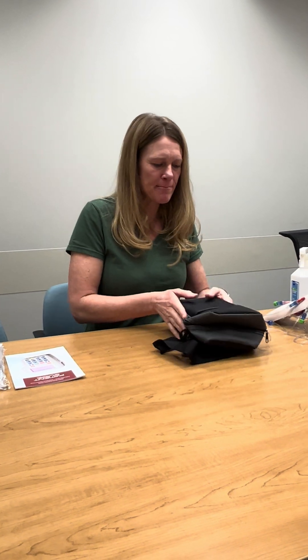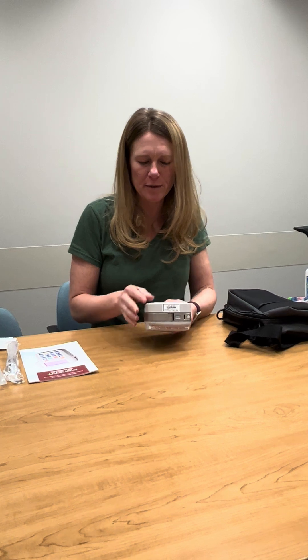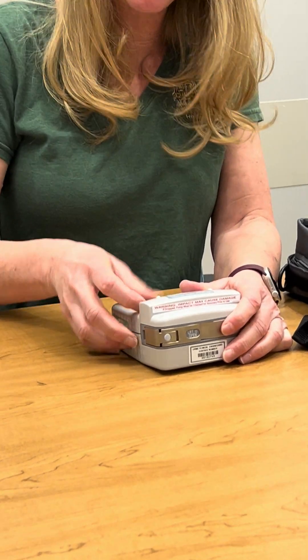Currently my pump is running. What I want to do is, prior to it telling me my infusion is complete, I want to get the next pump ready. In your supplies you're going to have an extra pump. We're going to use this one for the next hookup so that we don't have to be without your milrinone for a long period of time.